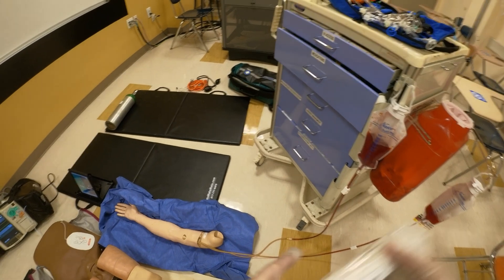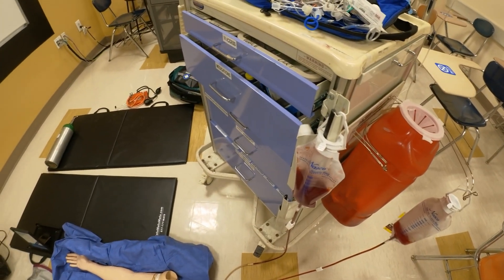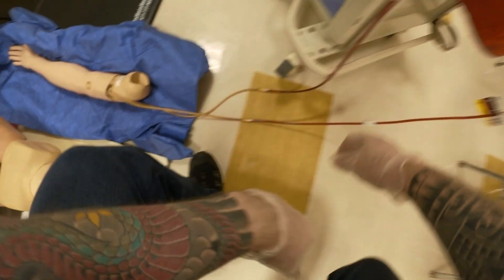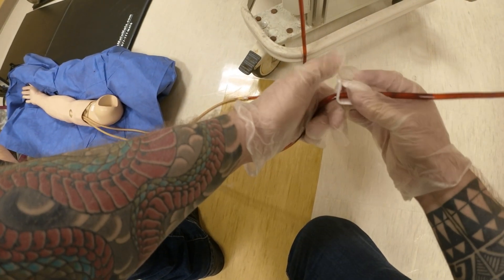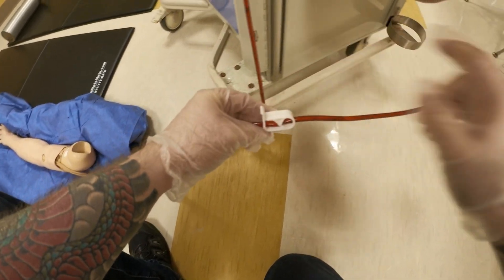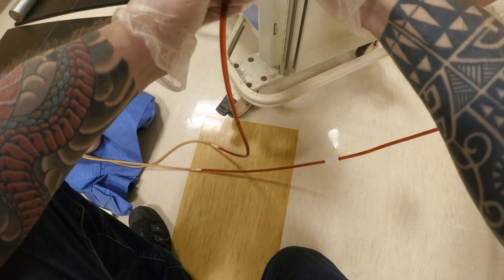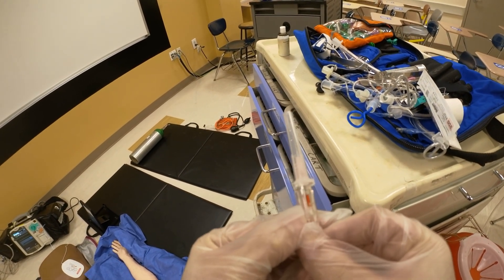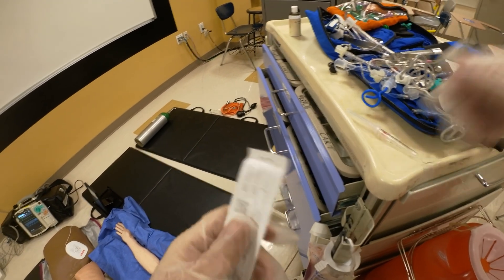The next thing I want to show you is the setup of the IV arms. The IV test trainer arm - you need two bags. One is going to be higher up. You only need to fill one with simulation blood, the red coloring. Once you connect them to the arm, you're going to open the top bag and you're going to open the bag that's lower. Once it fills up, you're going to close the lower hanging bag, and the top one is going to remain open. The purpose of this is that you want to simulate flash. You see how I have red in the chamber here - the flash chamber has red, and this tells the students they have positive confirmation of flashback.